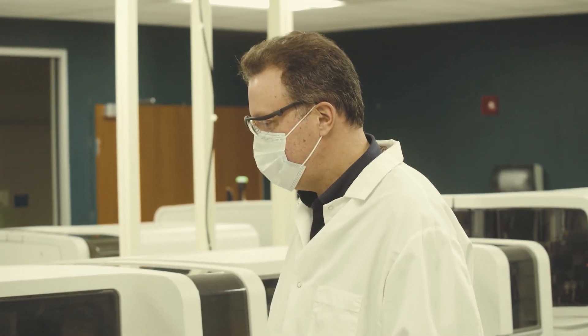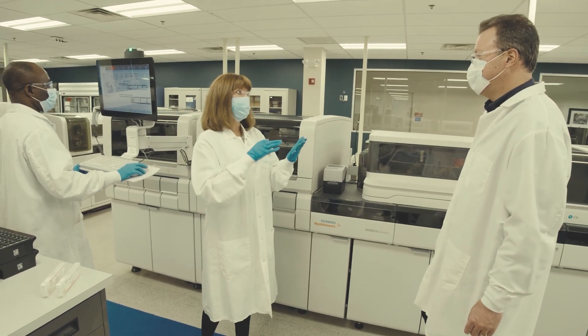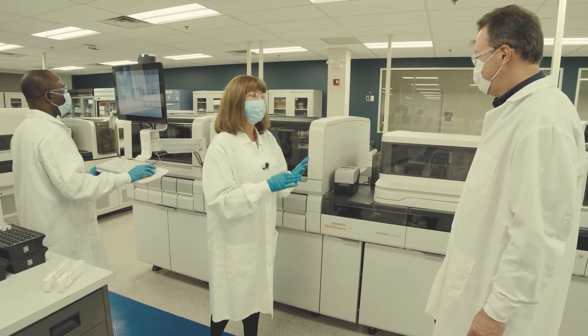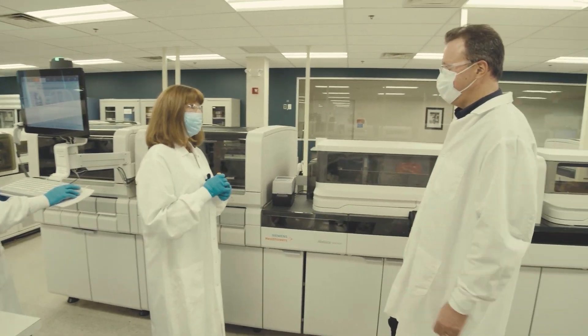This analyzes blood glucose, your blood cholesterol, in addition to testing things such as HIV, pregnancy, cardiac conditions. Wow, this machine does everything.